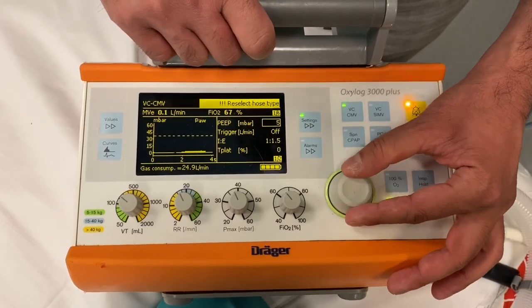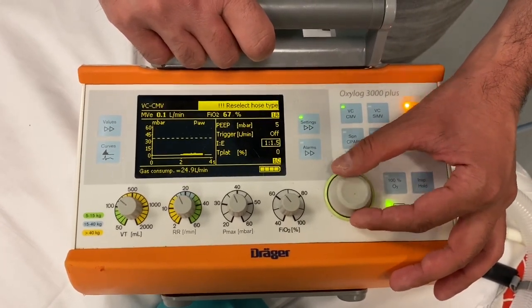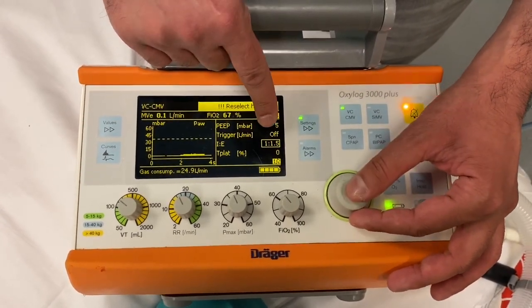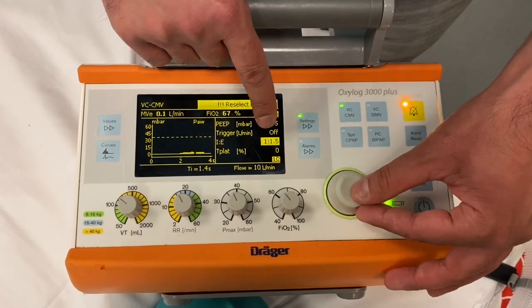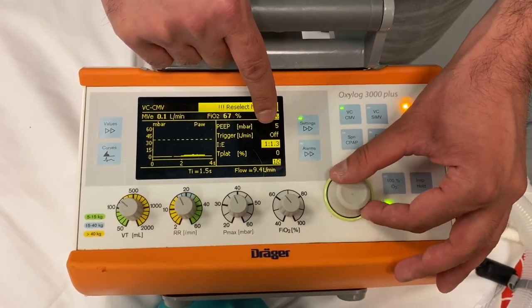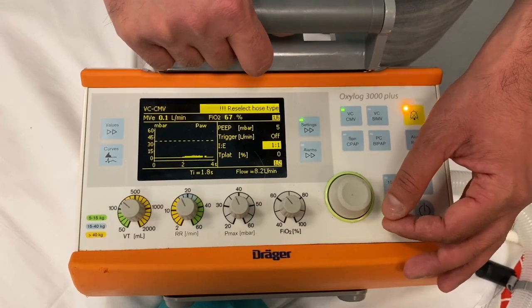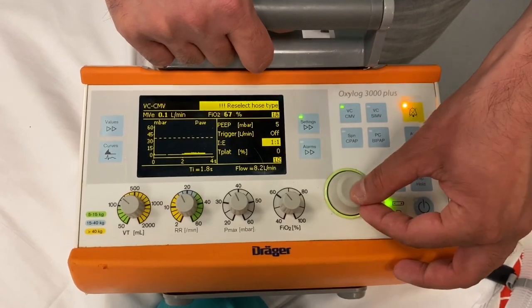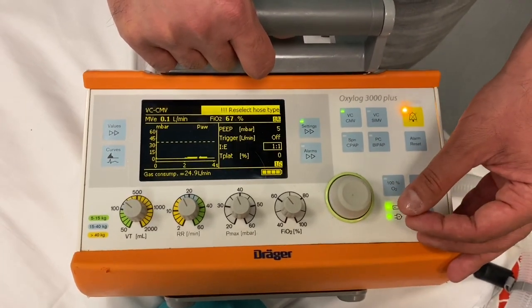Turn the knob until the rectangle rests over the relevant parts. Click to make it solid and change this until it goes to a one-to-one ratio, then click again to confirm.